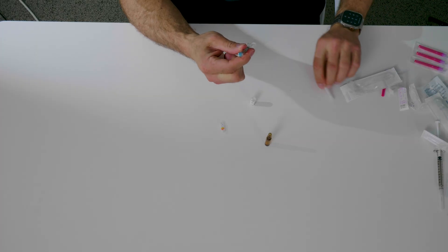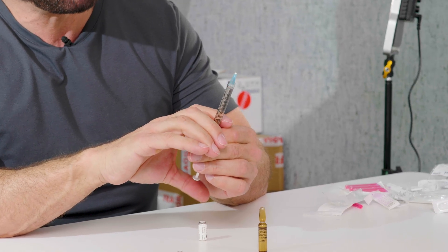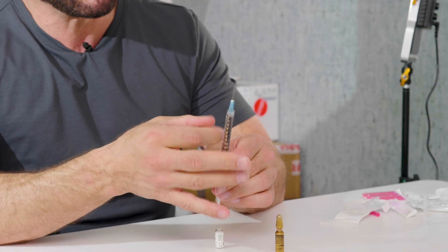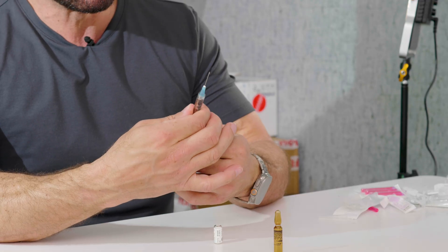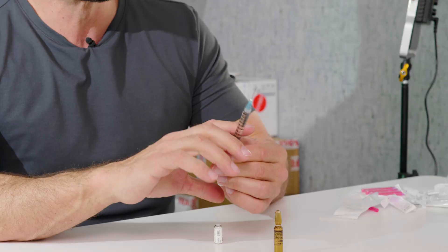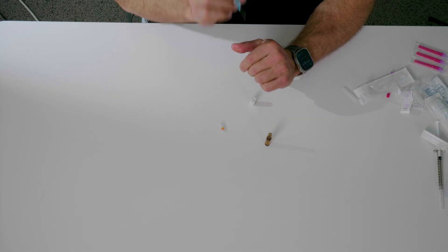Now I've got to get rid of that little air bubble. If I'm getting ready to inject, I go to where I want to inject, then look to get all the air out. I tap it to make sure there's no more air in the barrel of the syringe, then push the bottom of the plunger up until a little bit comes out. Right now I'm at the one milliliter mark but still have tiny air bubbles, so I keep pushing until all the bubbles are out. I'm just slightly more than one milliliter — just a tad — and there's a little bit of oil on the side of the needle. This is now ready to inject. That's how you prepare it.